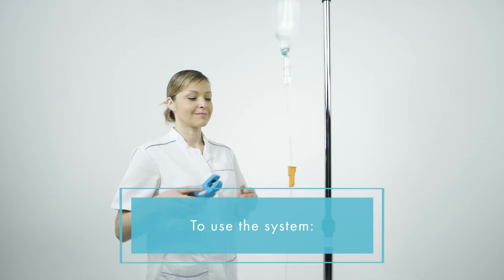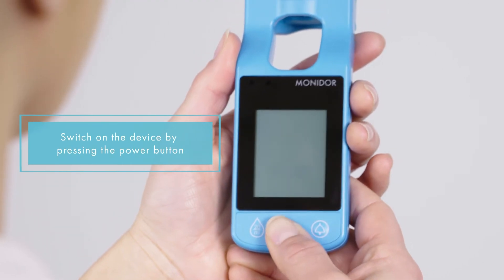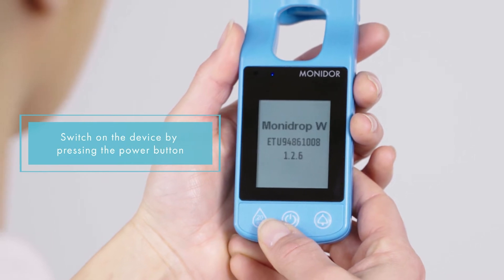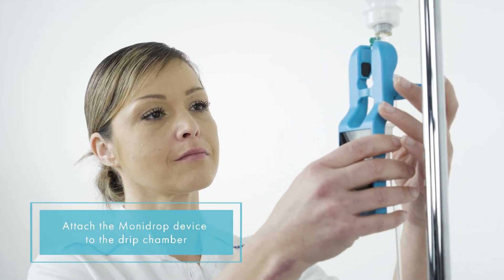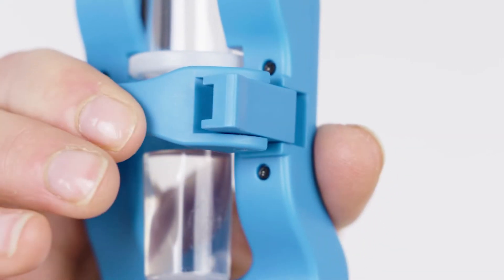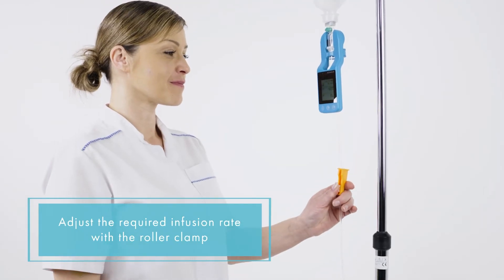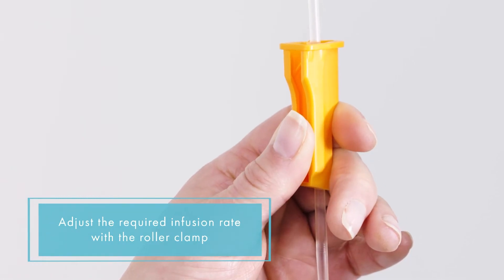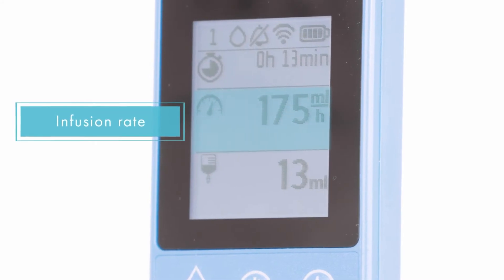To use the system, switch on the device by pressing the power button. Attach the MoniDrop device to the drip chamber. Adjust the required infusion rate with the roller clamp. The device displays the accurate flow rate.